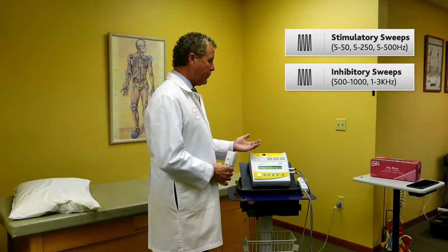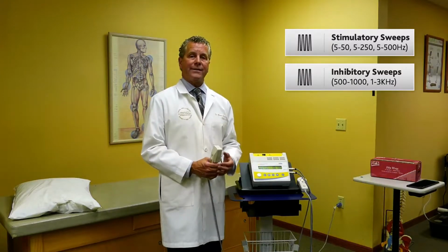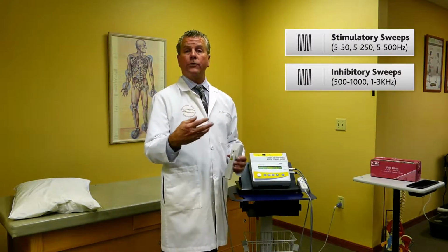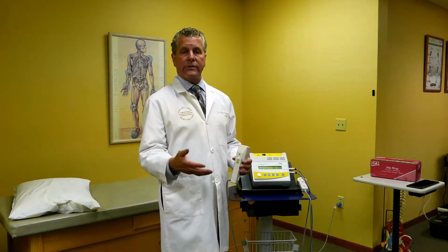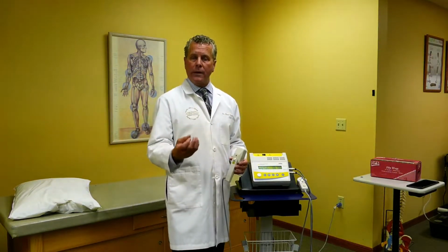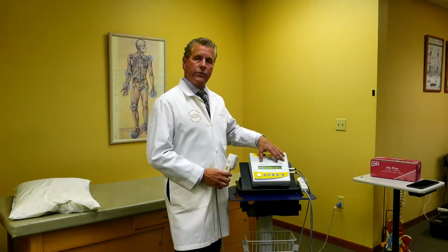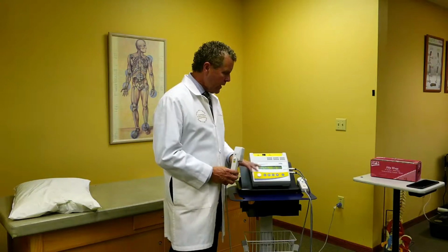When we're looking at tissue regeneration, what that is, we're stimulating the inflammatory process to push it along through the phase to allow that single cell to quit producing inflammation and have it be able to push through the whole inflammatory process and heal. Once it heals, the edema and swelling in the area is much less, and pain diminishes. So at first, the first 3 to 5 visits, I might use inhibition. After 5 visits, what I typically do, we'll move it to tissue regeneration.